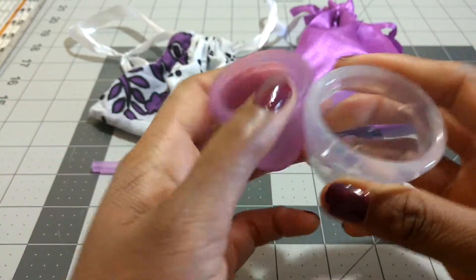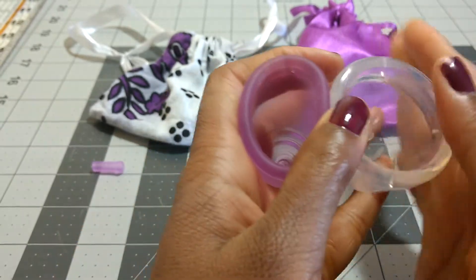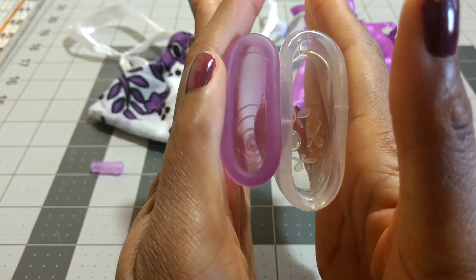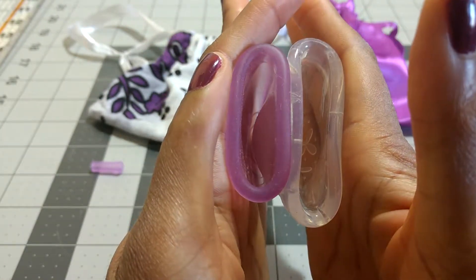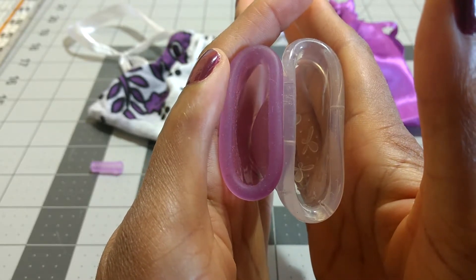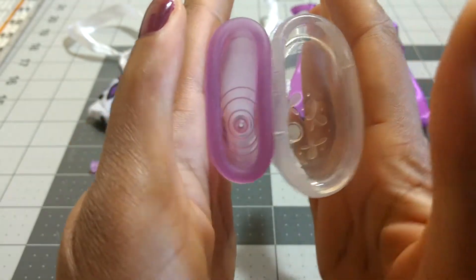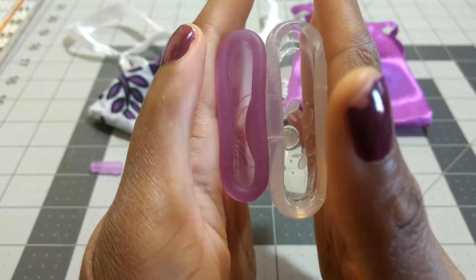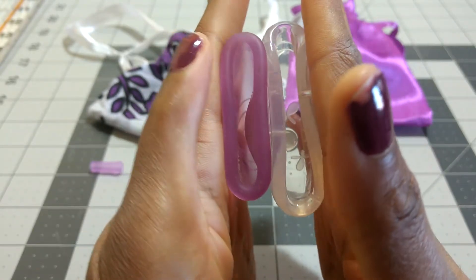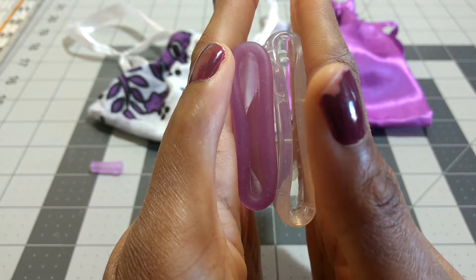To compare the firmness, the Ruby is definitely softer. I'm going to try to line up the bases here. When you press on the bodies, you can see the Juju kind of immediately crushes the Ruby — that's because the base of the Juju is quite firm compared to the rest of the cup. Pressing just on the rims, the rims are much closer in firmness than the bodies. I have to press really hard to get both rims to close up at the same rate.